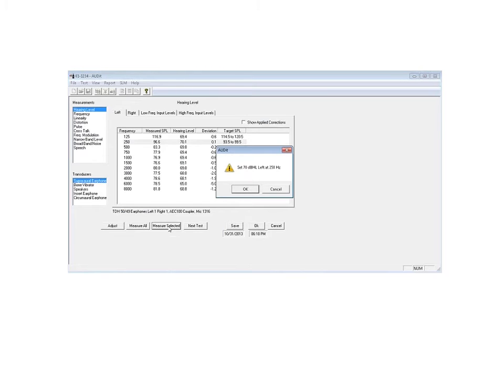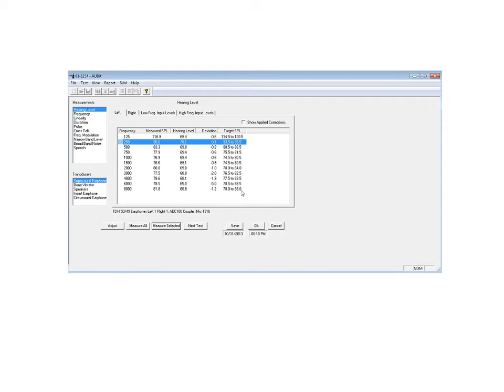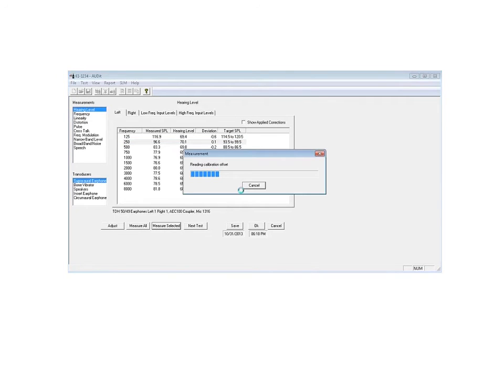What I'd like to do for the demonstration is just leave the calibrator on over the microphone, which we know is supposed to be 114 dB sound pressure level, and we'll tell this OK and measure my calibrator, which is over the microphone at this point in time.